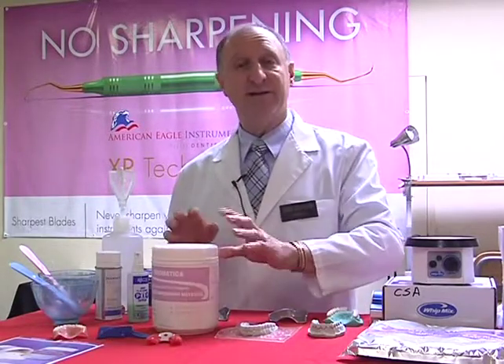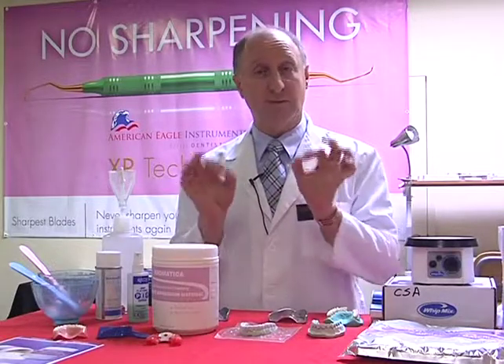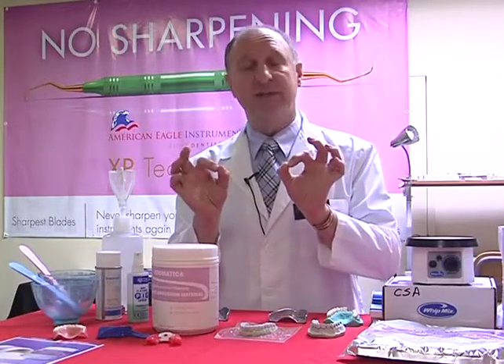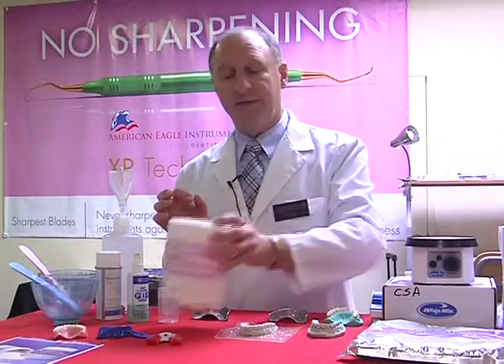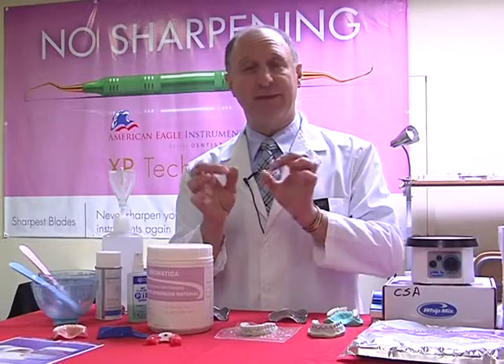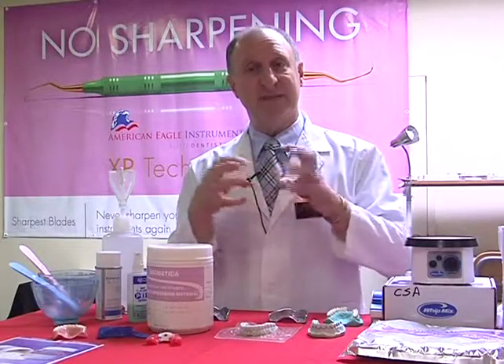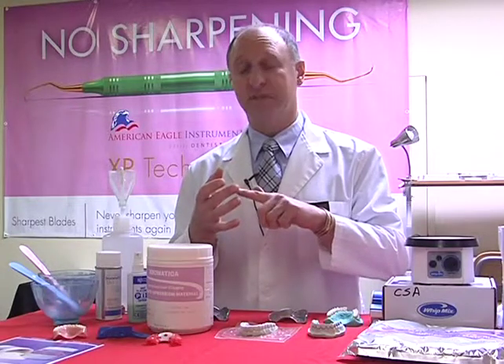When alginate is manufactured, it is made in 3 different particle sizes, which are all soft, round, and spherical shaped. If we ever shake it up like this, those particles bang against each other and break, and they become like jigsaw puzzle pieces that don't fit together. We've just changed the working time, the setting time, the dimensional stability.